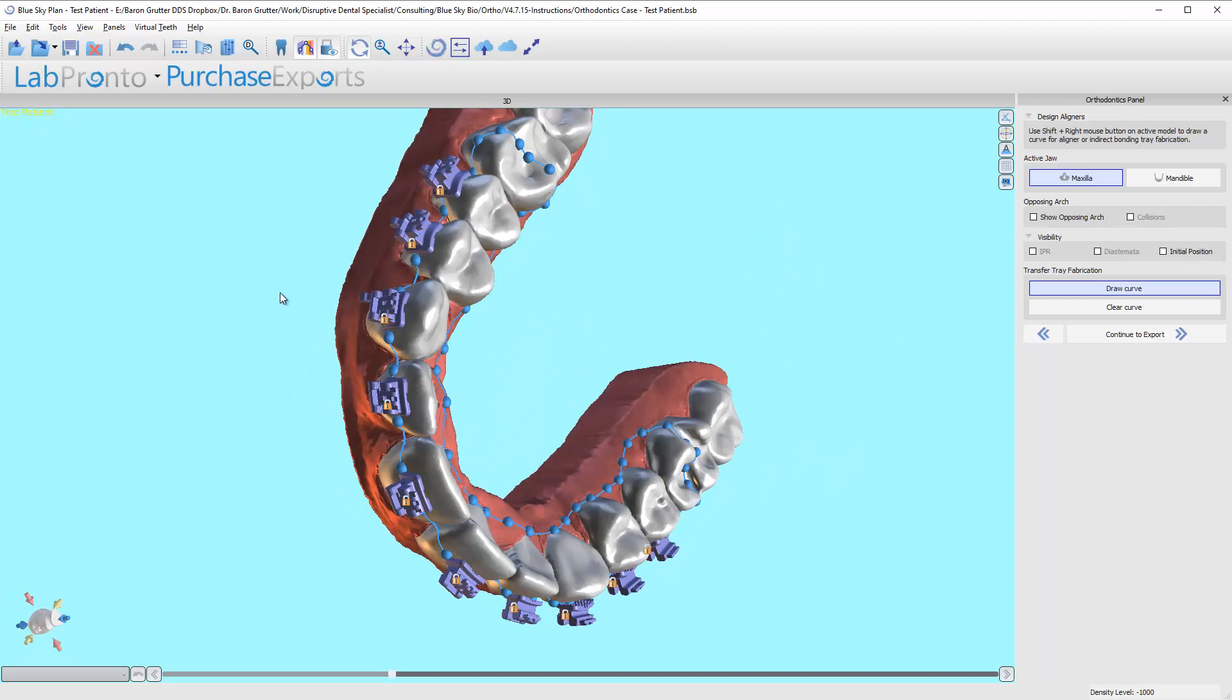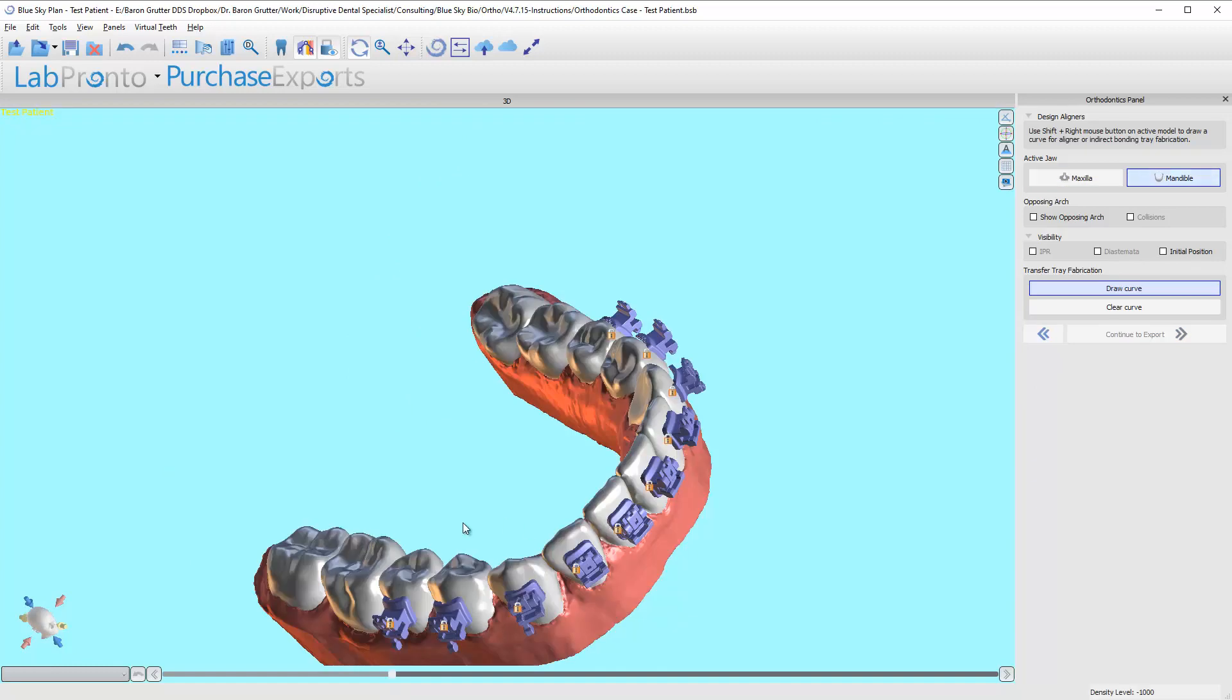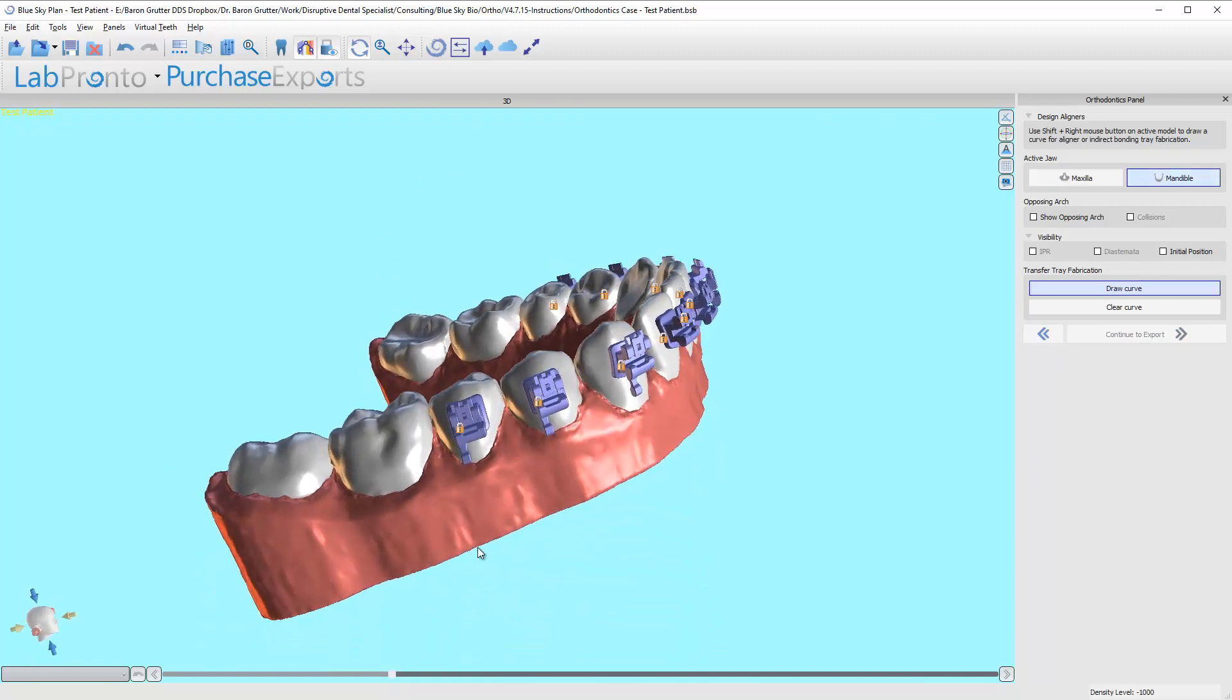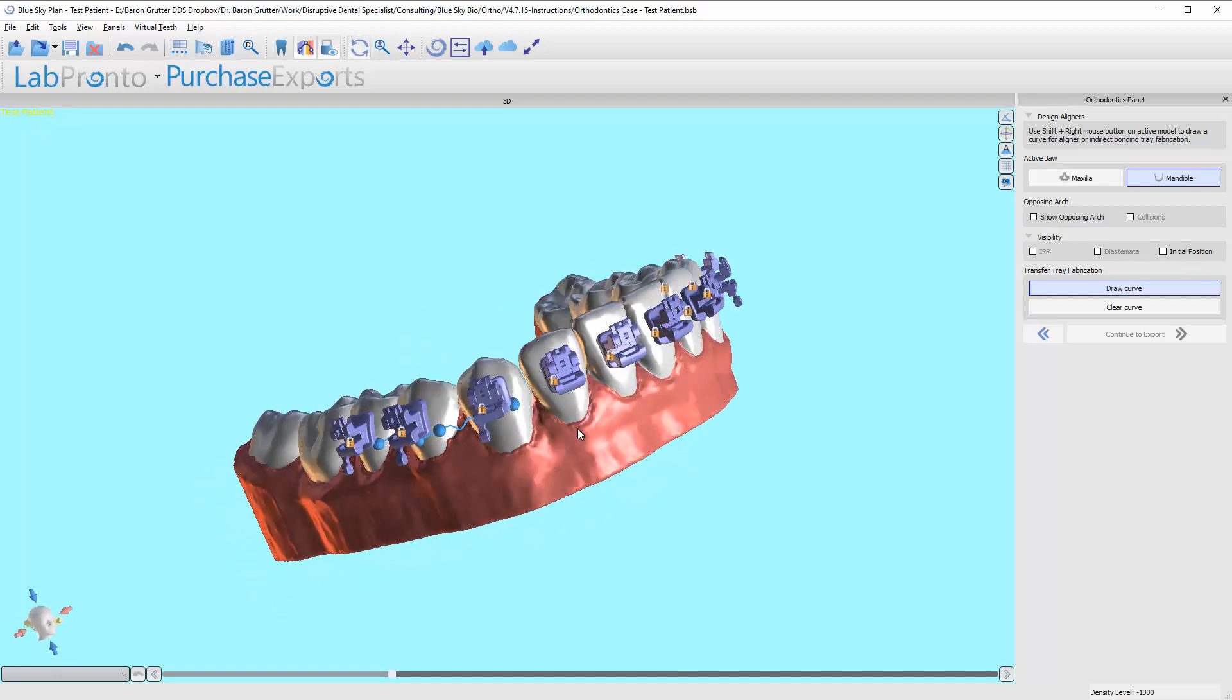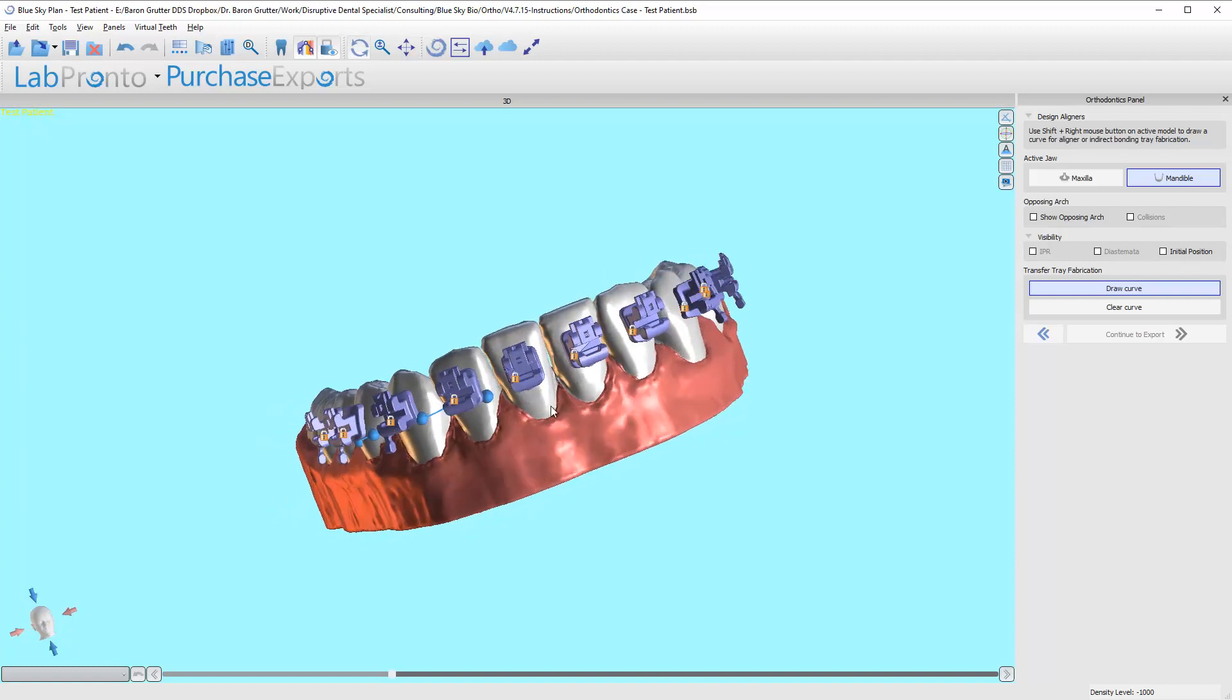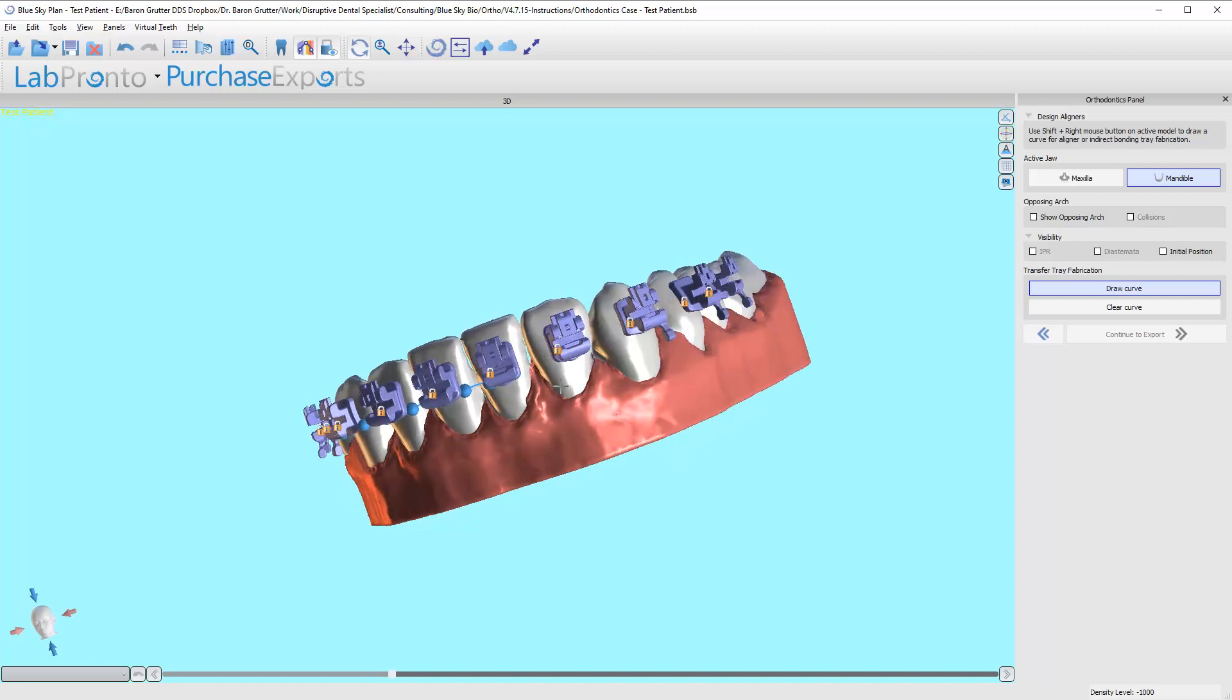I like to go at the very bottom of the bracket because that way the bottom of the bracket is exposed, sticking right out the bottom of the tray. I just find that to be easiest because you can remove excess cement.